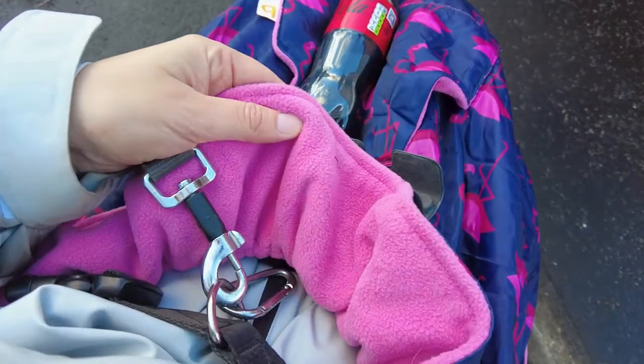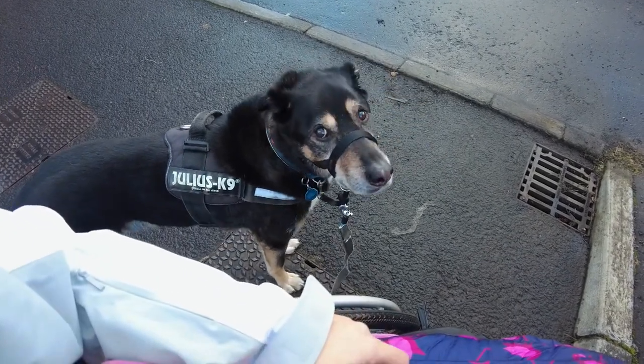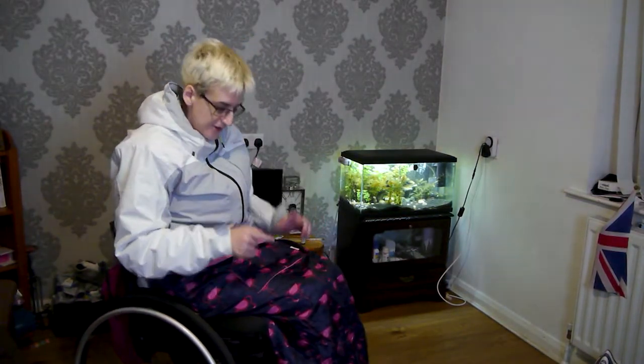Now I have to come and take Max out. I'm just back from the shops with the dog and I'm still lovely and toasty. It's fleece-lined and everything. Alright, well that's us back from the vets now. The thing I like about this is it's really, really warm.